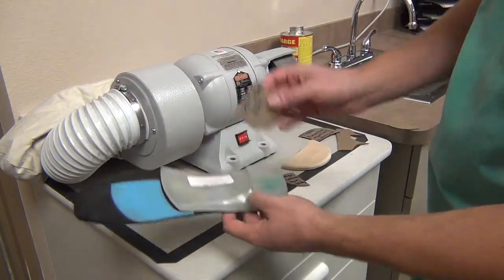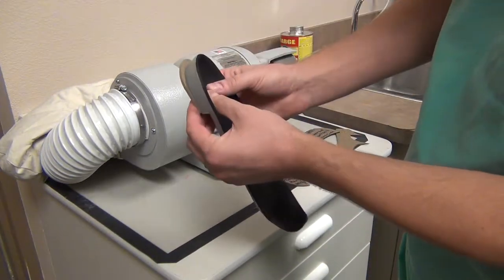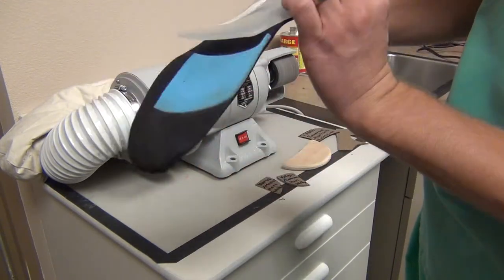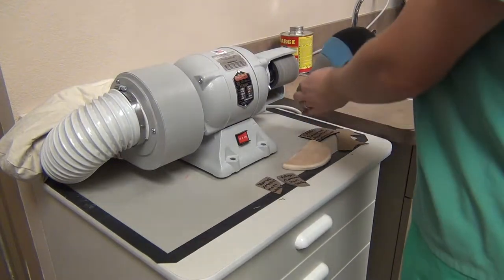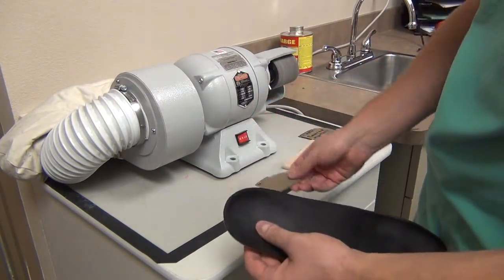For the other pads, you do heel lifts — I always use this to cut it. You can notice that when we do that, it's slightly larger than the actual heel itself on the shoe. And that's purposeful, so once you glue it down first, then you would actually grind the excess off the device, and then it looks like the factory actually put it on themselves.